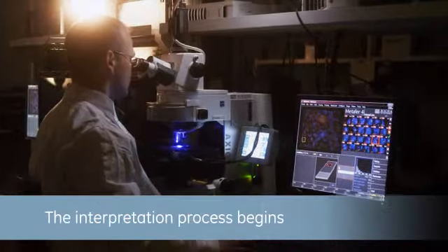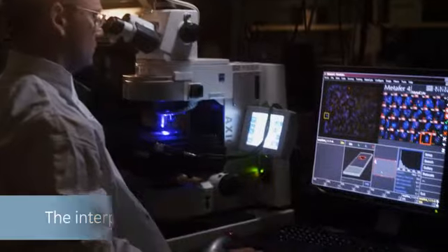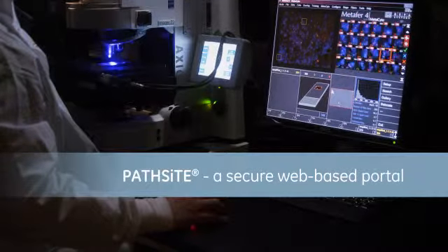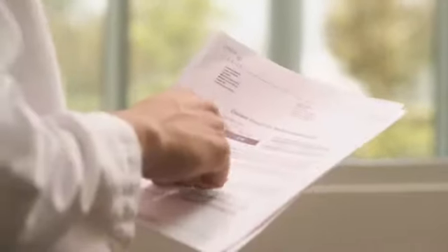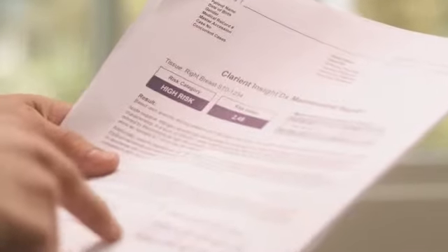Physicians can access analytical tools and test results easily using PathSight, a secure web-based portal. And when the complexity of a case goes beyond the expertise of our client, our team stands ready to assist with expert consultative services.